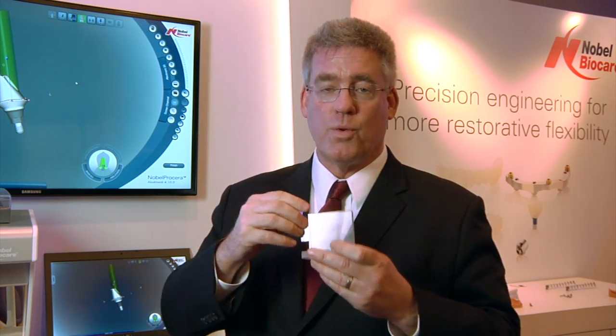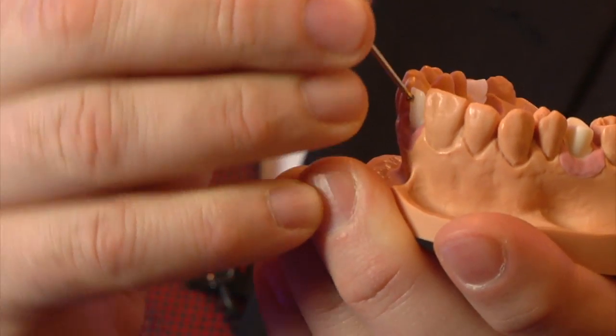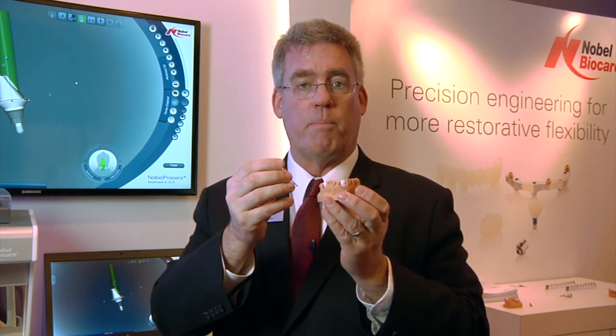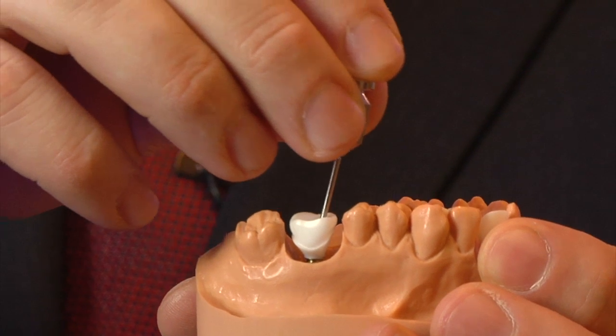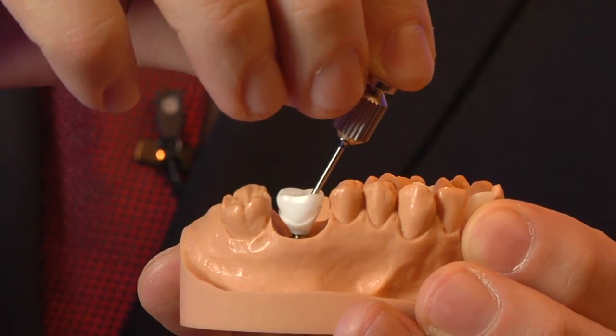Not only are we going to be able to change the direction of the aesthetic outcome in an anterior tooth, but we're also going to be able to address the posterior tooth with very low vertical space. Instead of having to go in this way, we can actually change this up to 25 degrees and retrieve the abutment the other way.